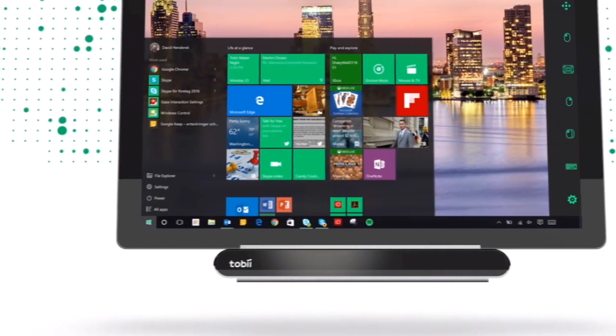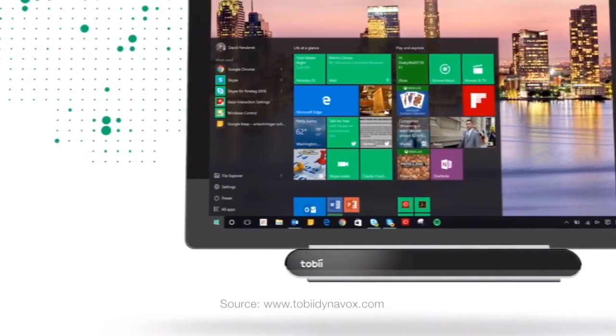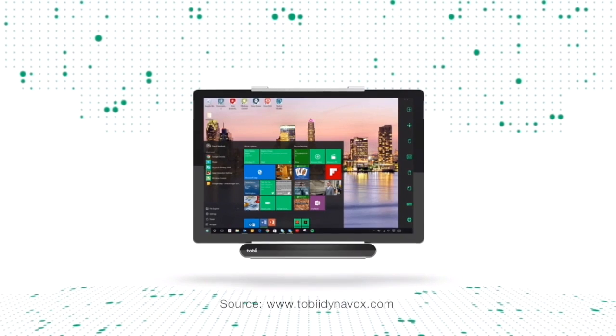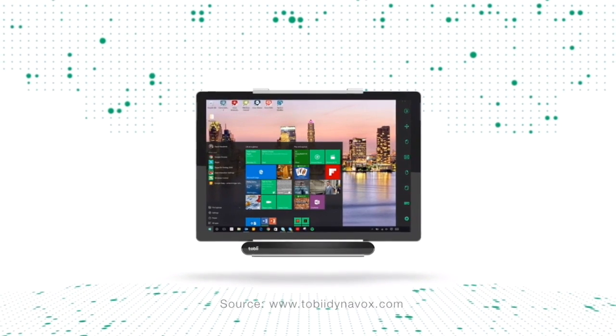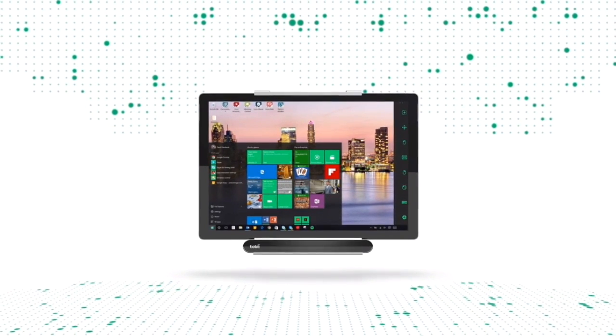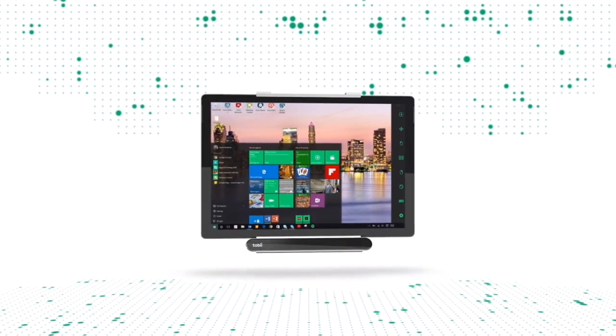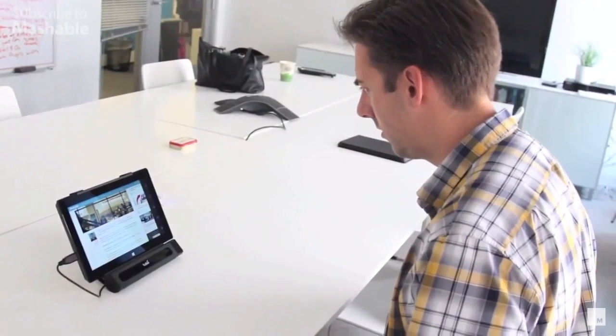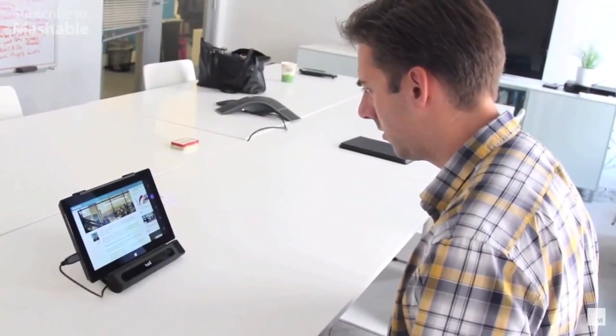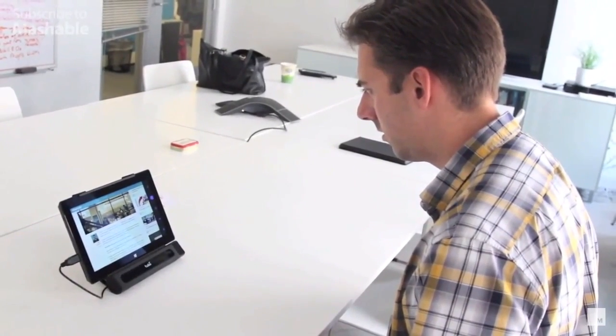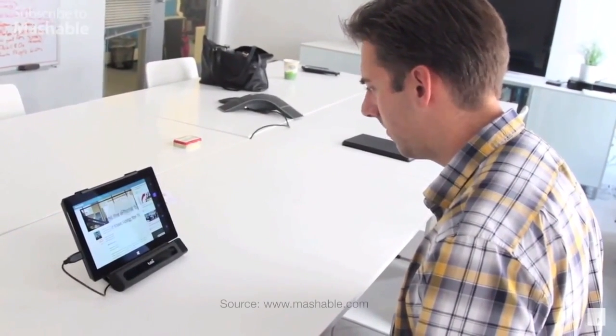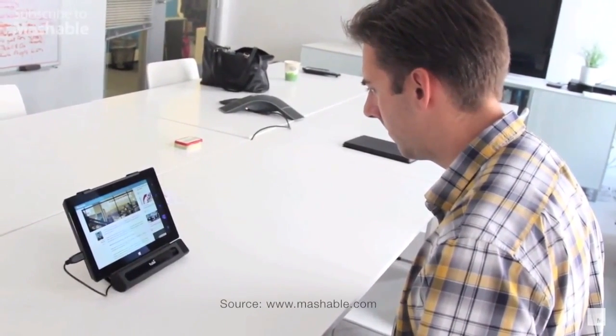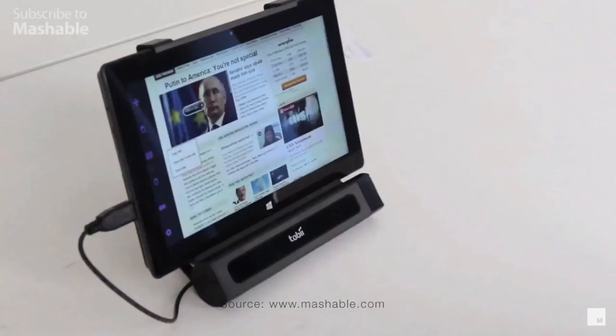Correctly calibrating the Tobii eye-mobile is essential as it allows you to achieve a high level of precision when using the modes of gaze selection and mouse emulation. It also helps you achieve a correct distance away from the eye tracker.